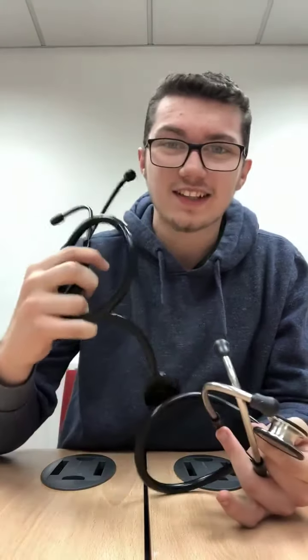So this is actually the stethoscope itself. It's really nice and it's got really good quality to it. The cheaper one is sort of very cheap metal, where this one's a really nice quality metal. Now the acoustics compared to the two — over a while, the cheaper one really fades out and it's just really hard to hear chest sounds, blood pressures or anything like that. I've had paramedics borrow it and they just said it's useless. So the acoustics on this one are really good.